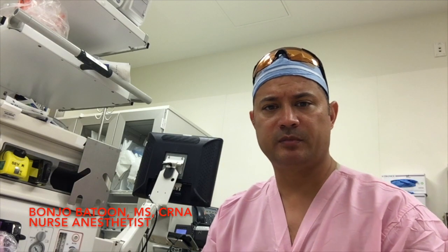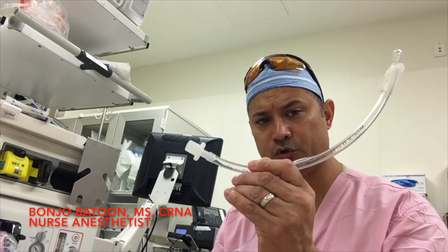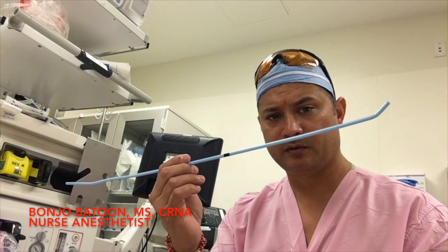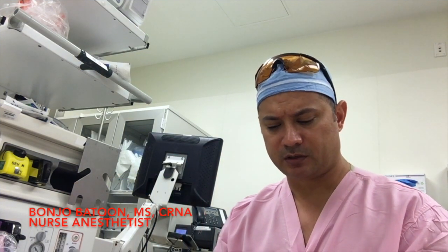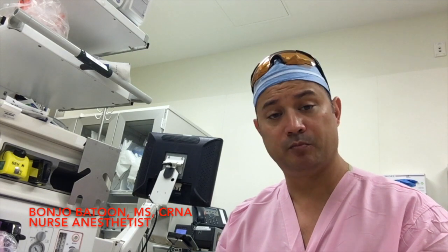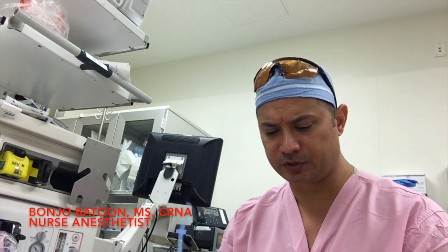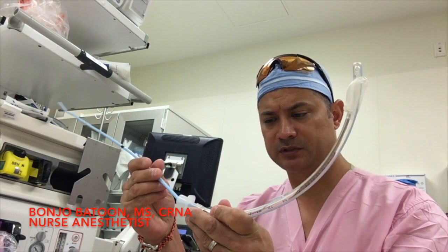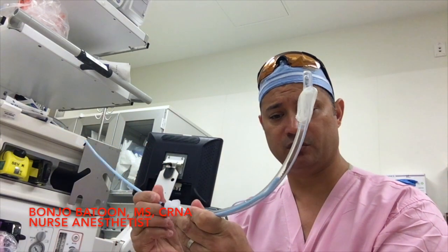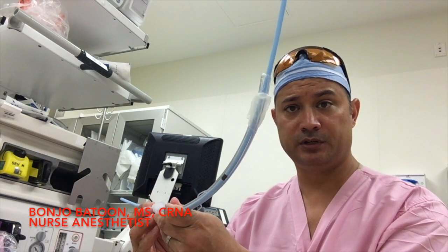Anyways, I want to talk to you guys about a technique I was playing with a little while ago. It's a combination of an ET tube and a flex guide type of bougie. What I call this is the bougie styletted ET tube. Basically, I'm going to take this ET tube and stylet it with the bougie — some will call this preloading your bougie on your ET tube.